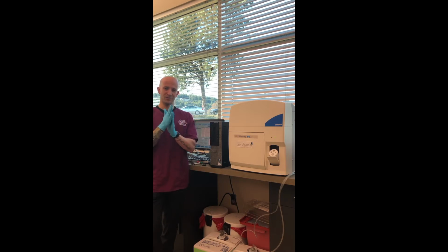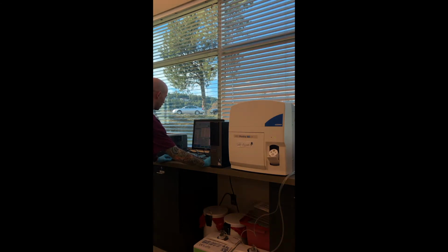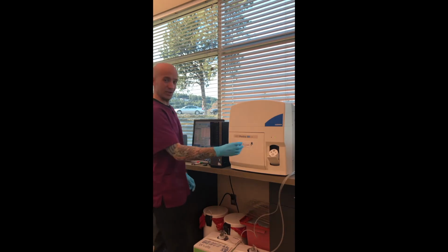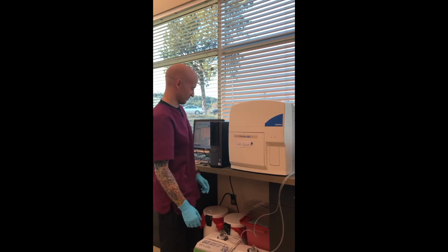So after you're confident that the control is well mixed, you want to come to the drop-down menu that I showed you before, pick the correct control, make sure it's the same one. You want to look at the lot number, and the one I'm looking at is PX421L. And so I see PX421L in that menu. And then after that's selected and it's mixed, you stick it into the slot and just close it and run.